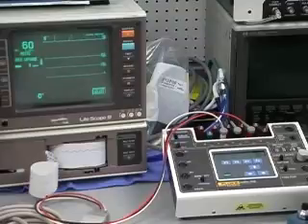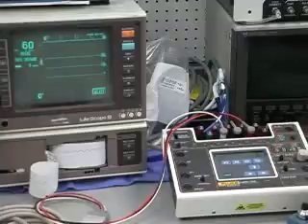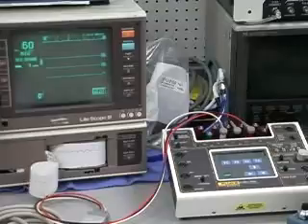It's going up very fast. And there's a certain window for that slope that the R wave detectors will work. You're able to test all that by using this mode. So if you're having problems with the rate meters and you want to replicate the waveforms, you can come pretty close with the MedSim.